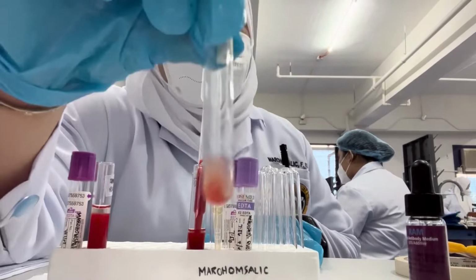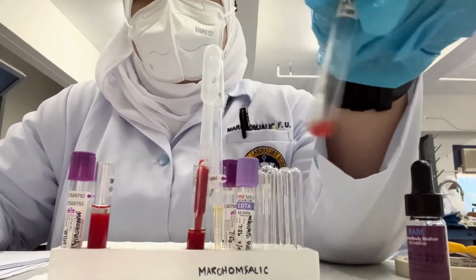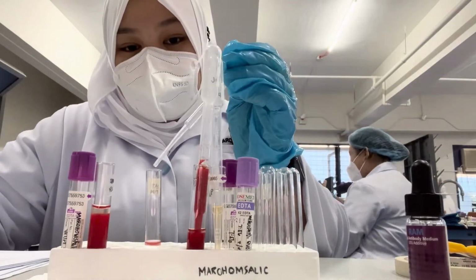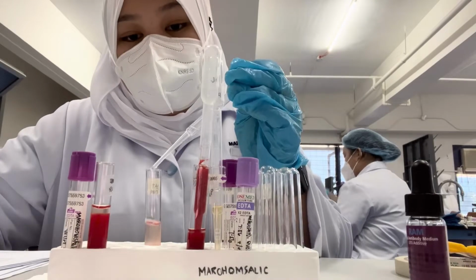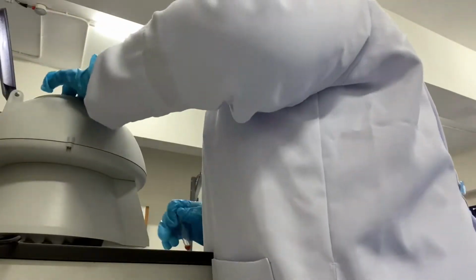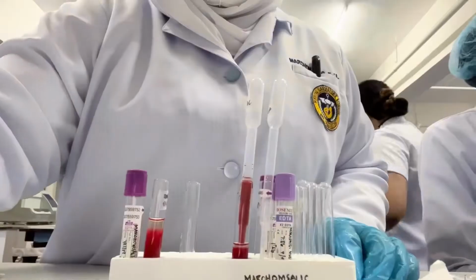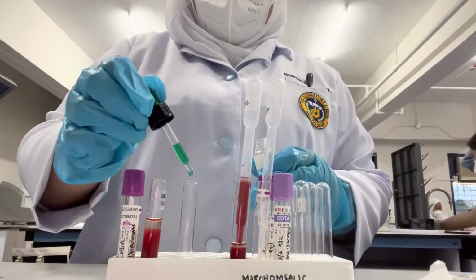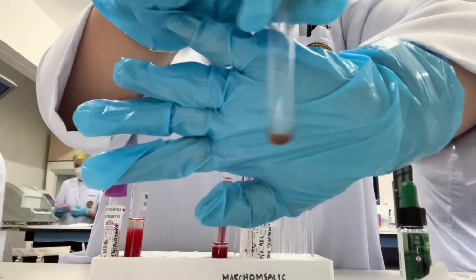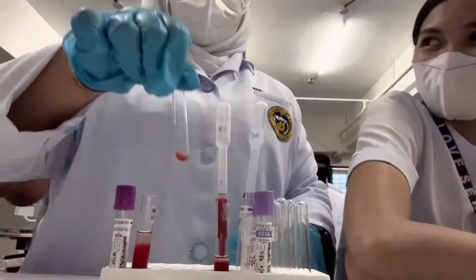After centrifugation, resuspend the cell by gently tipping. Seventh, wash the tube 3 times with normal saline solution. Follow the procedure presented in the red cell washing. Make sure to completely decant the final wash. Step 8, add 2 drops of AHG to the dry red cell bottom and mix. Repeat steps 4 and 5. Lastly, observe for agglutination, grade, and record.